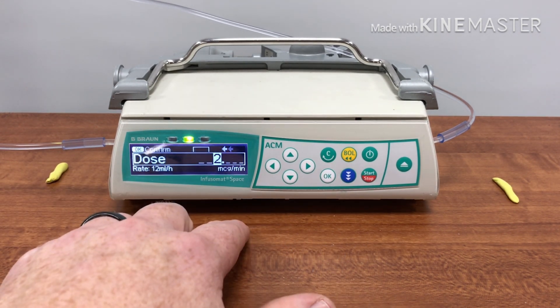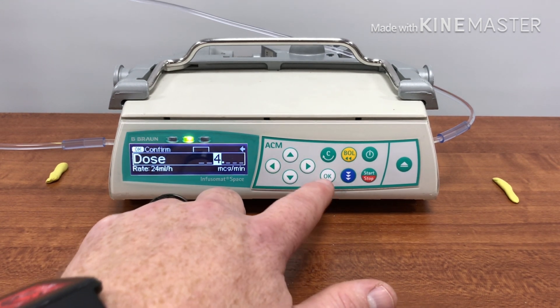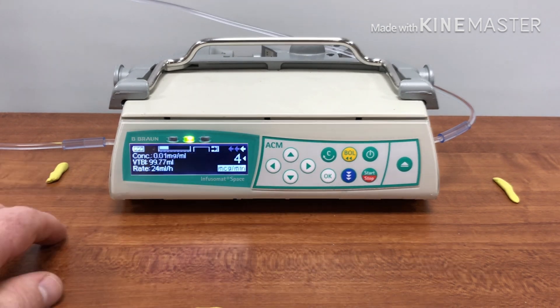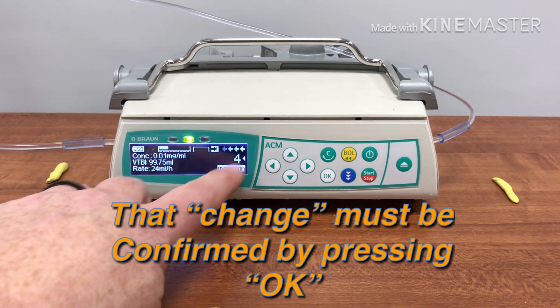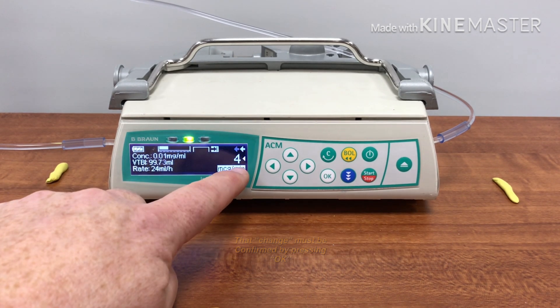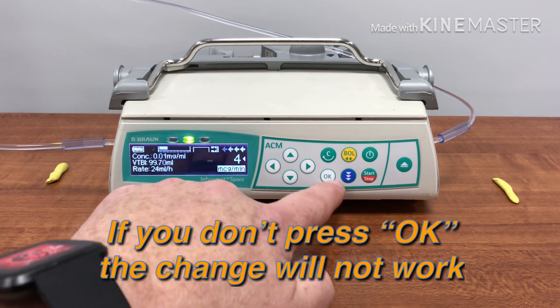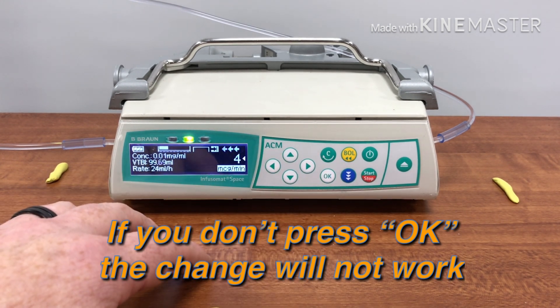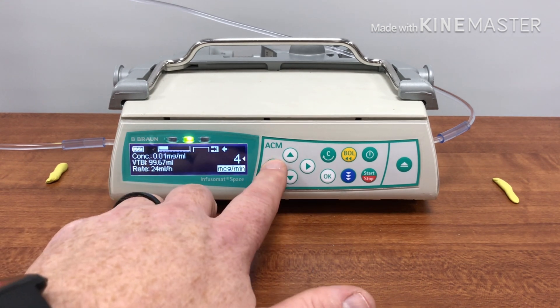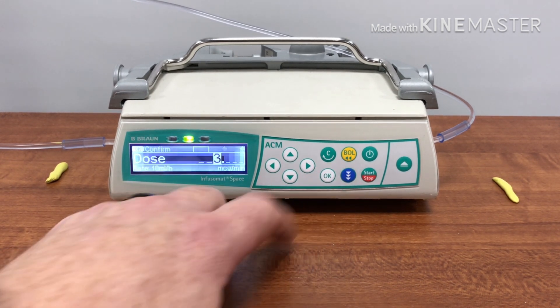Simple — you just hit the arrow button toward the dose and choose what you want, determined by you and your partner. It will infuse at the new rate — for example, four micrograms per minute — but it will not change the rate or the dose until you've confirmed it through the OK function. To turn it down is the same way; you just bring the number back down.